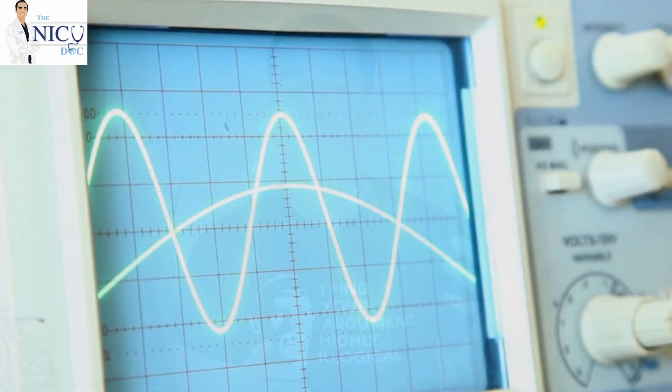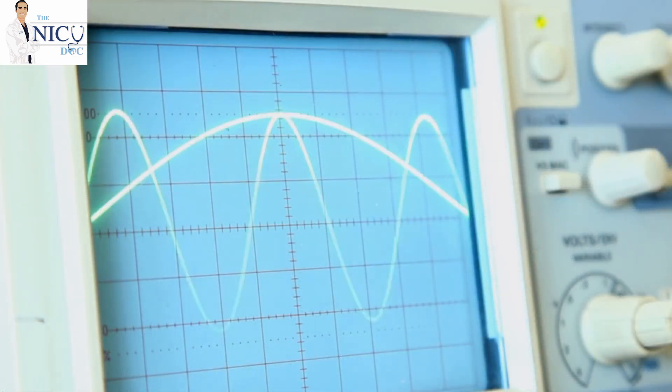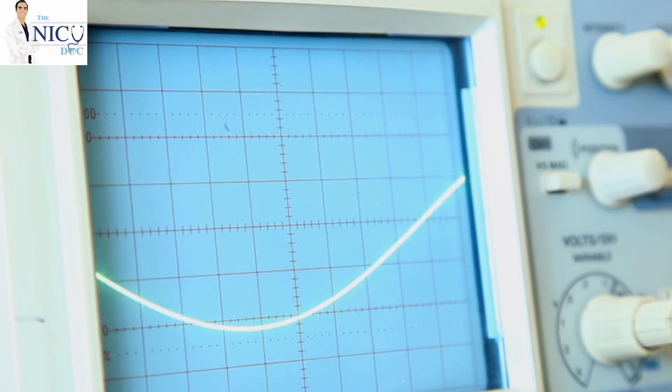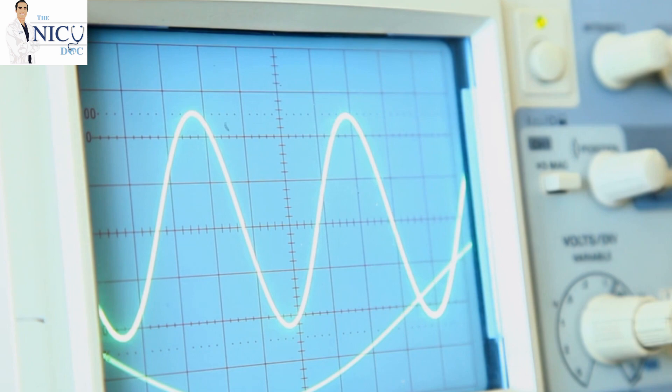You have your mean airway pressure, and then you also have your amplitude. Your amplitude is essentially saying, if I have a mean airway pressure of 10, but I am oscillating — that's a wave — so how do you oscillate around that wave? The highest peak of that wave is your amplitude. And your amplitude basically controls your tidal volume. If you have a really high peak, you're going to have a larger tidal volume, assuming you're not changing the hertz.